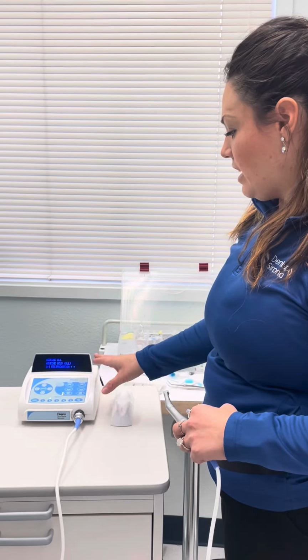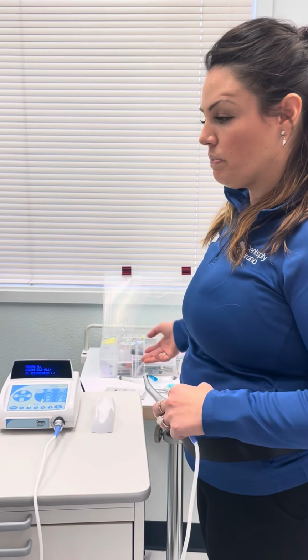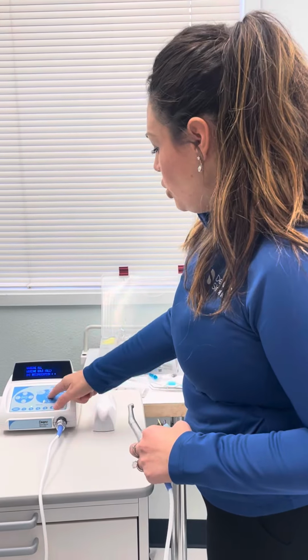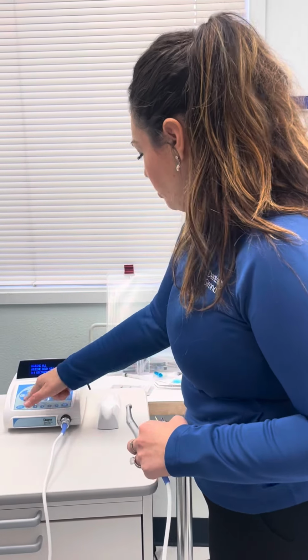The only time that you're not going to be on number 2 is in the event that you are going to use that Orifice opener or some other file system. Number 2 is the only one currently loaded in here that does have the reciprocation aspect, and that is what your file is going to thrive on.